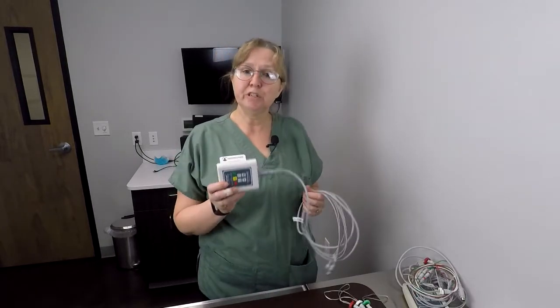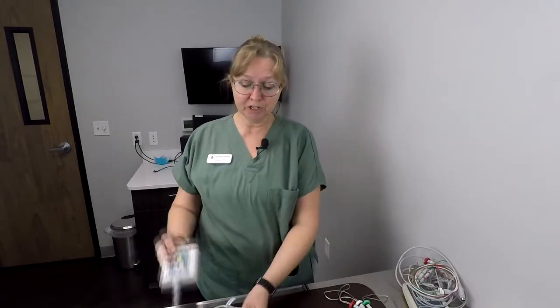Hi, I'm Lana Gibbs, clinical educator here at SOVSC. Today I would like to introduce our new PC VetCheck wireless ECG patient monitors. This equipment is used when we want a wireless option for monitoring our post-op surgical patients that may be experiencing arrhythmias, or when we have cardiac patients in the hospital that require monitoring of their heart rates and rhythms. These new units will be added to the floor in addition to the old units.